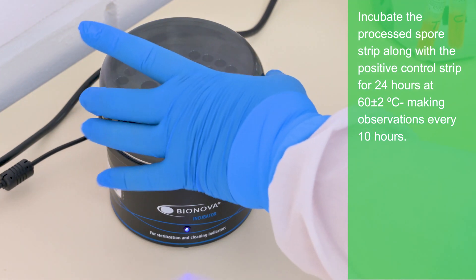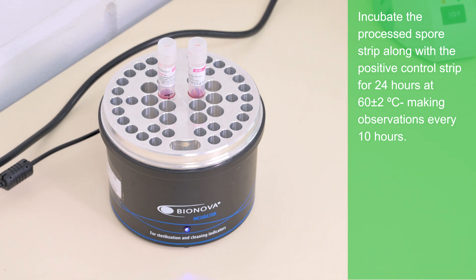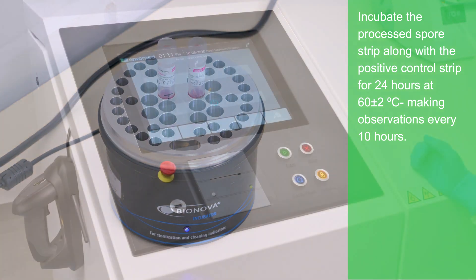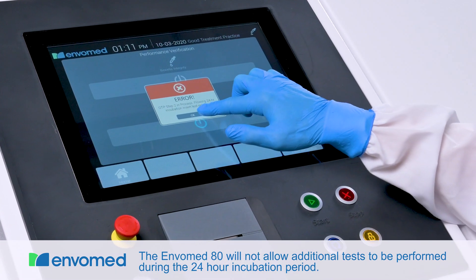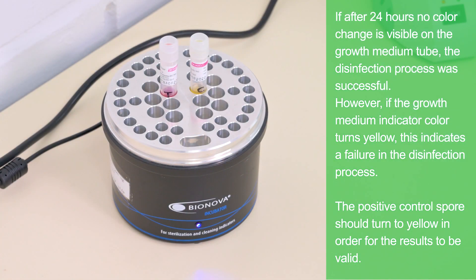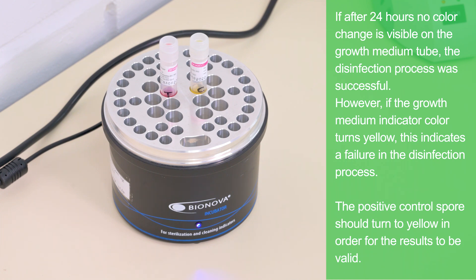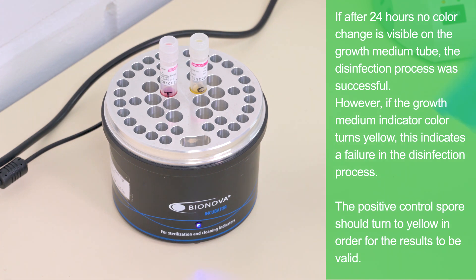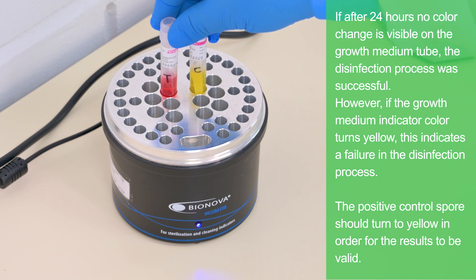Incubate the processed spore strip along with the positive control strip for 24 hours at 60 degrees Celsius, making observations every 10 hours. The Envomed 80 will not allow additional tests to be performed during the 24-hour incubation period. If after 24 hours no color change is visible on the growth medium tube, the disinfection process was successful. However, if the growth medium indicator color turns yellow, this indicates a failure in the disinfection process.